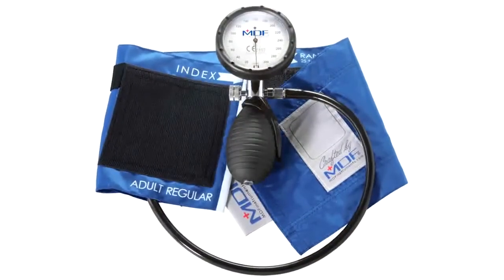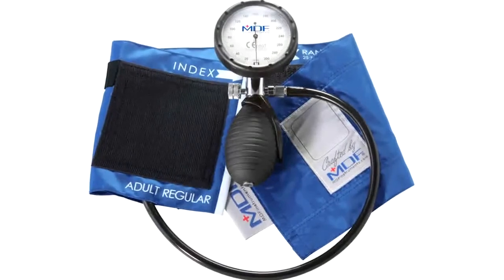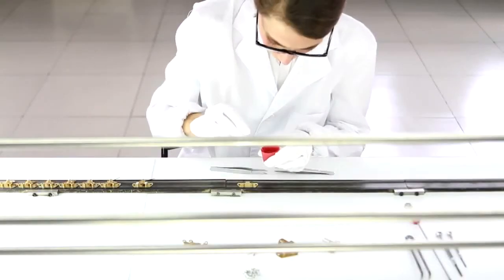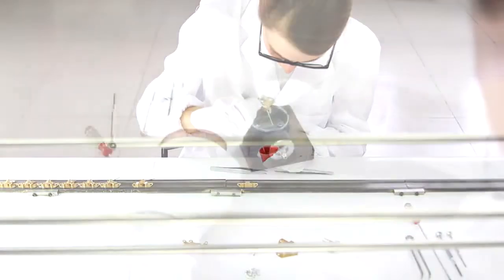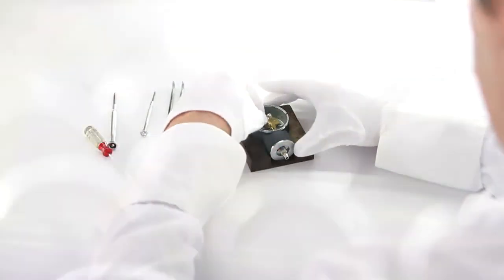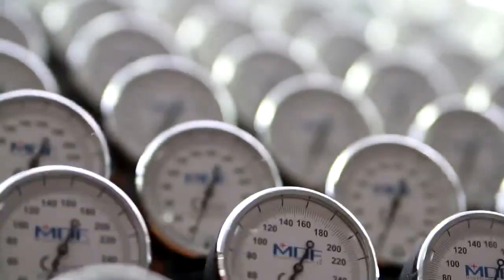Which is great for emergency settings. And so with this engineering pursuit and our handcrafted quality, it really comes down to the fact that you're getting one of the most accurate and durable sphygmomanometers in the market today with some of the best warranties. You'll have a lifetime calibration warranty and a three-year warranty on the entire unit, and that's really what you get with MDF Instruments: premium instruments with the best warranties.